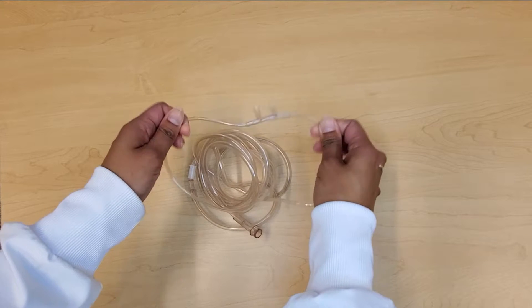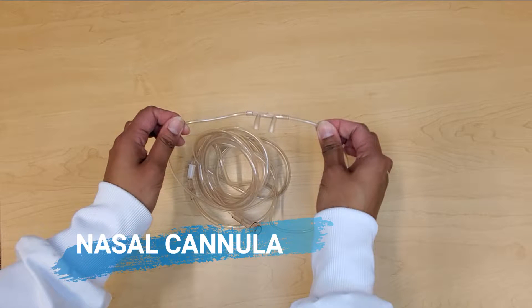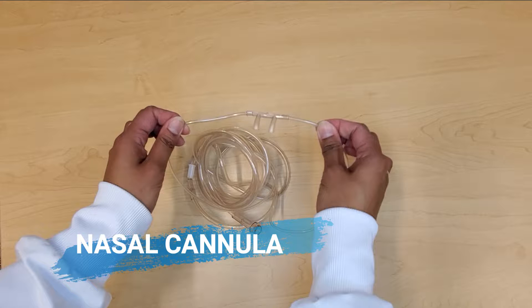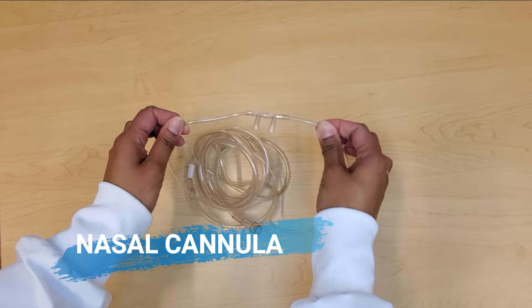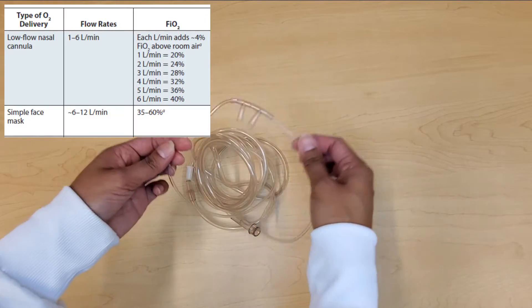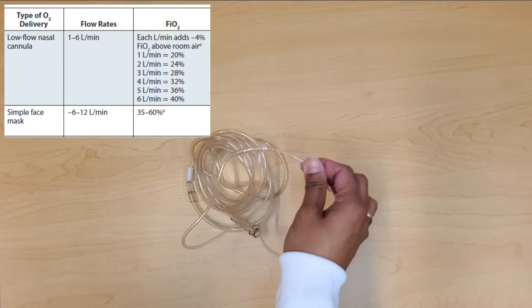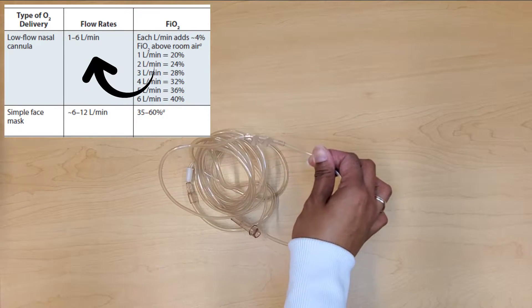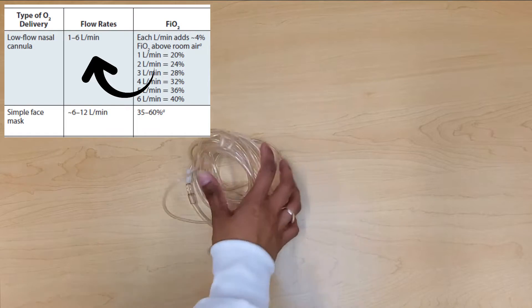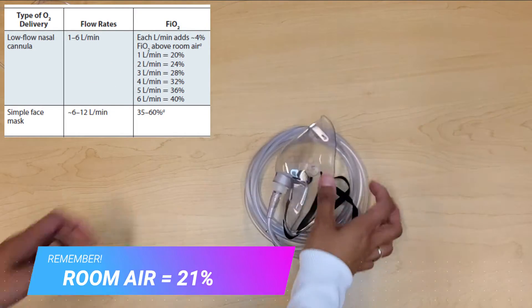Let's say that we walk into a room and we do a set of vitals on our patient. SpO2 is 90% and we have orders to keep our patient above 92%. The first device we would put our patient on is the nasal cannula. We can set it anywhere between 1 to 6 liters per minute, giving us a fraction of inspired oxygen between 20% to 40%.